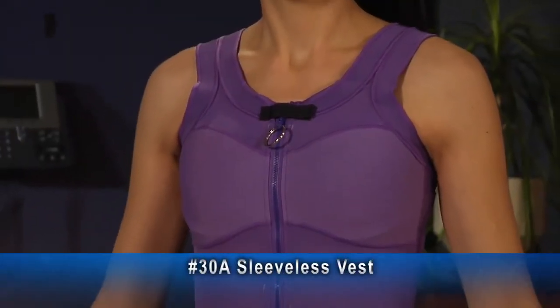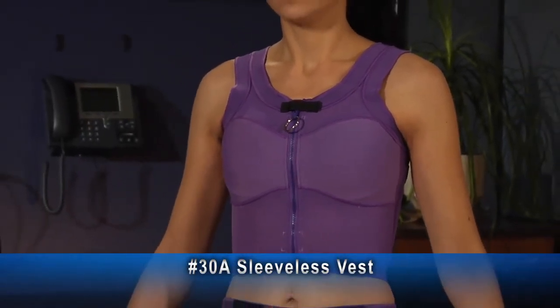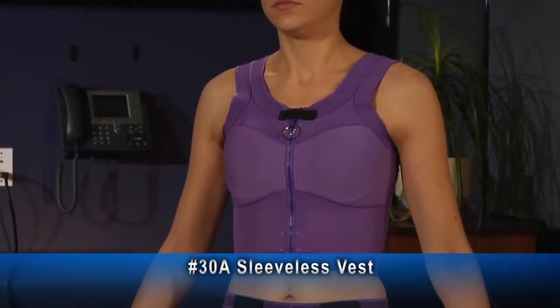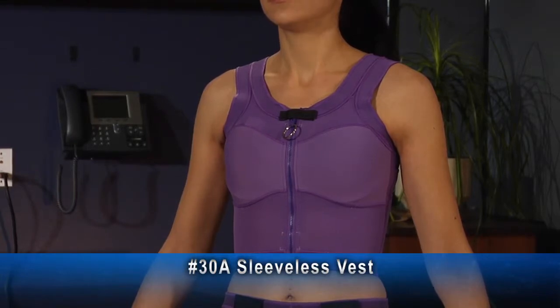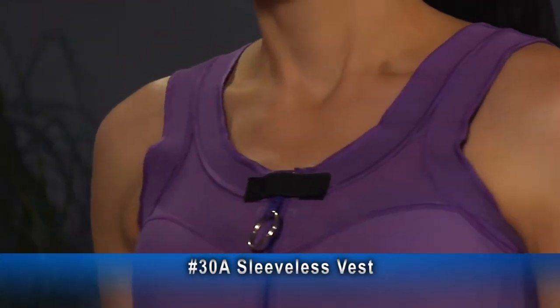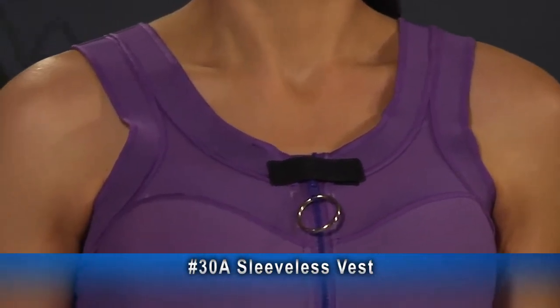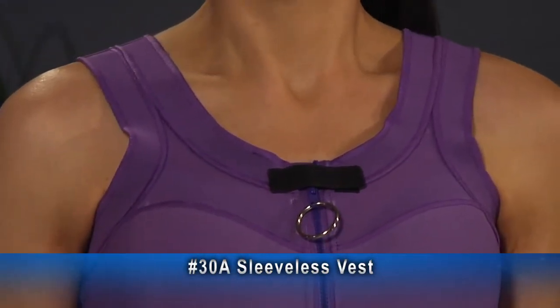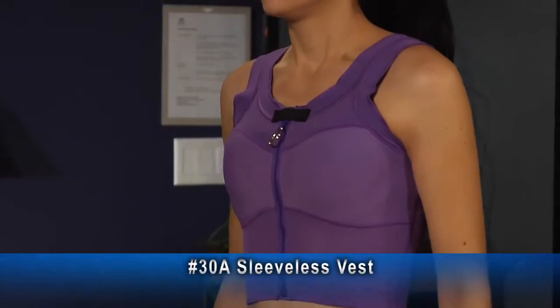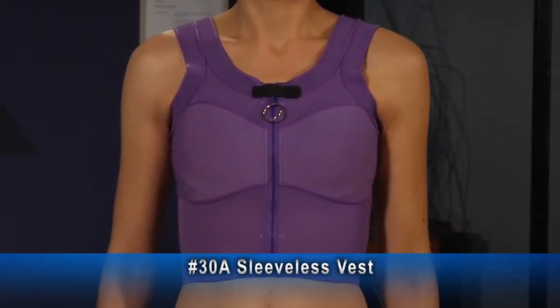This tank top style, number 30A sleeveless vest, has breast inserts and a Velcro tab over the zipper to keep it from opening. The zipper also has a hook and eyes to help with closure. The zipper is in the front, which is the default for an adult patient. There is a Velcro tab and a pull ring on the zipper, along with breast inserts.